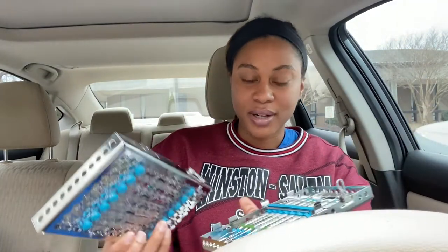I just wanted to show you guys my two kits — I'm really excited about them! Yesterday we used both of these kits interchangeably. Today I don't think we're going to use these; we're doing something different. We can't have our phones in class, so I can't really vlog as much as I'd want to.